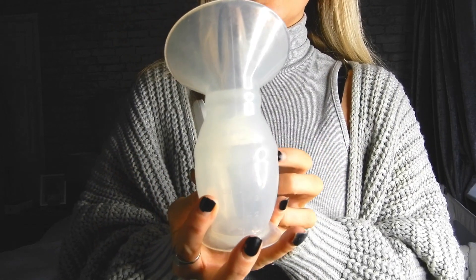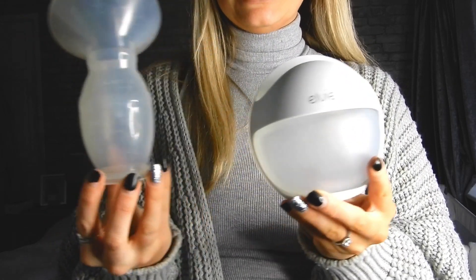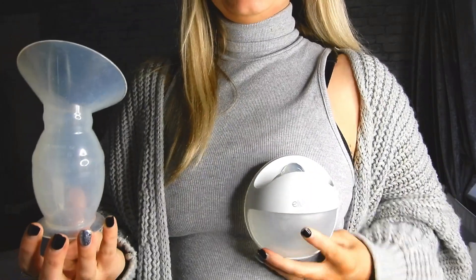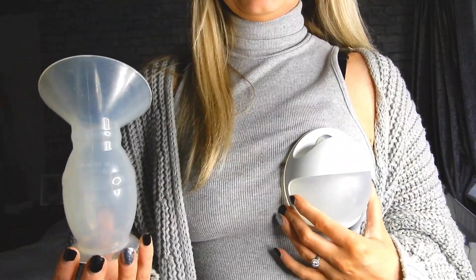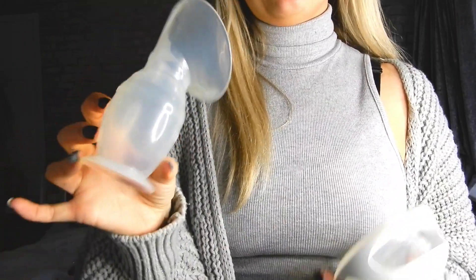Width difference — it is thinner, and from the front it's wider but it's a lot more hidden. It's perfectly shaped to the size of your breasts, whereas the haakaa is nothing like the shape of your breasts.